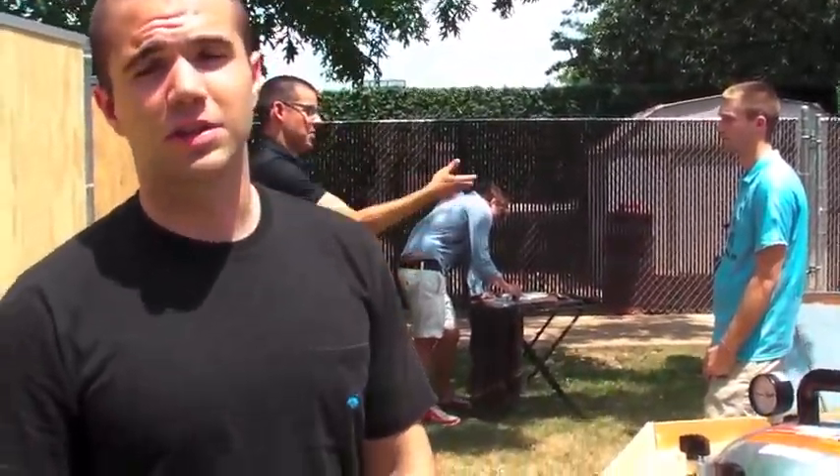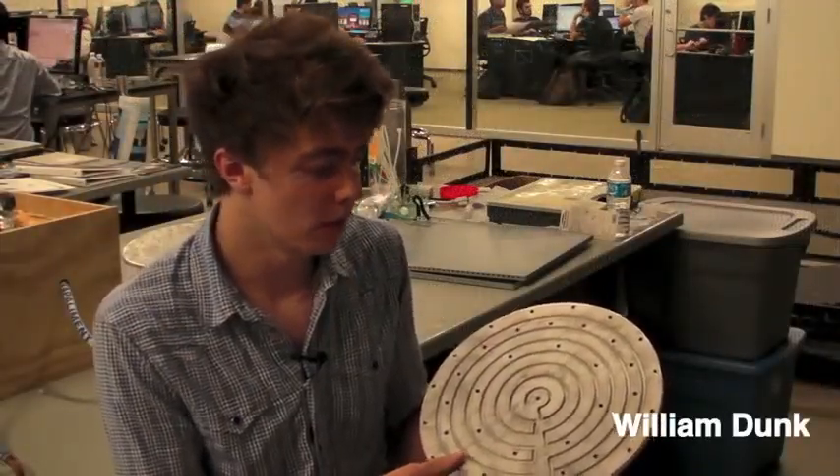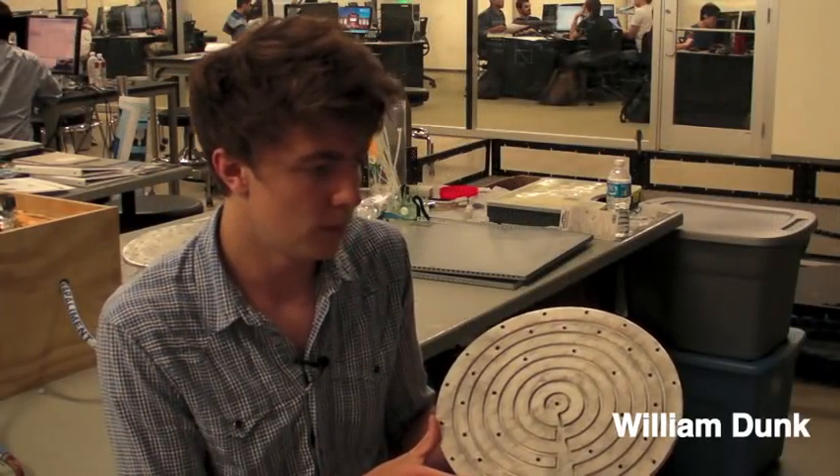And we've been successful. When it's a sunny day, we can get the autoclave up to 121 degrees Celsius. It's able to sterilize medical tools. The idea behind the hot plate was to make the design easy to use.